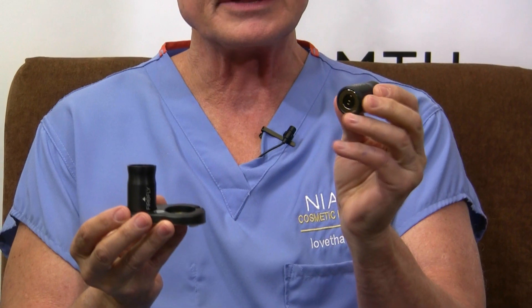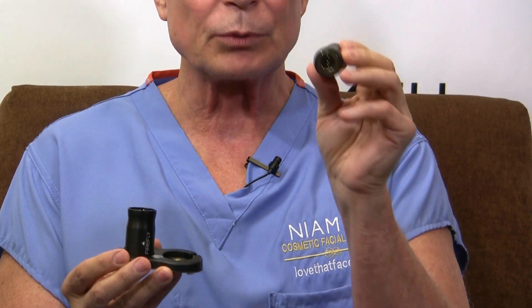Basically you have this little module — it has the headlight, which is really the battery and the lens and everything self-contained, so there's two of them. There's a little wall plug that plugs into this and it charges. A little light comes on, and when it's fully charged, on the low power setting it'll last two and a half hours. On the high power setting, which is very bright, it'll last about 90 minutes.